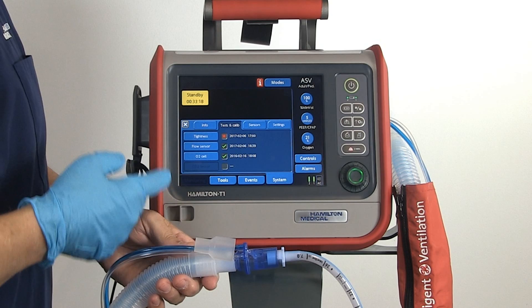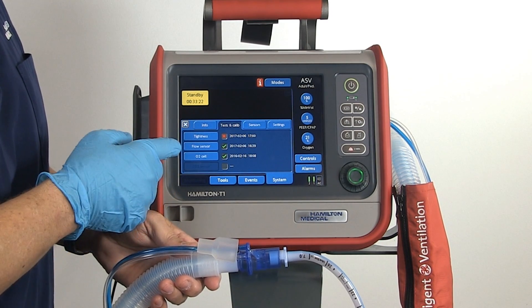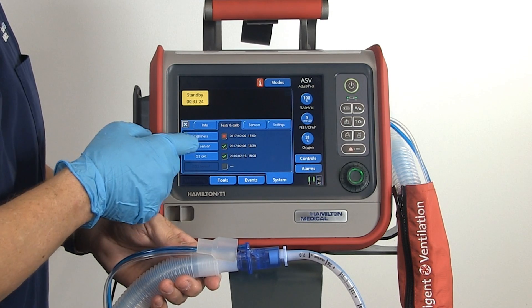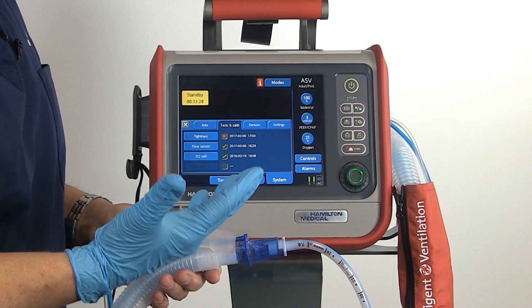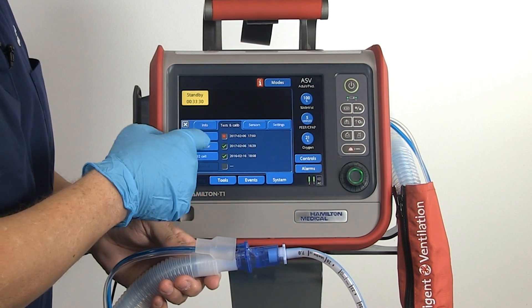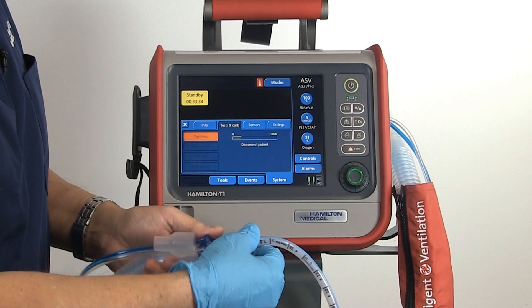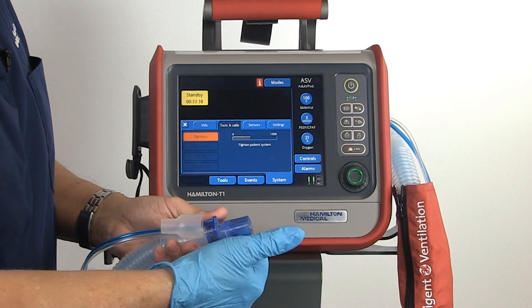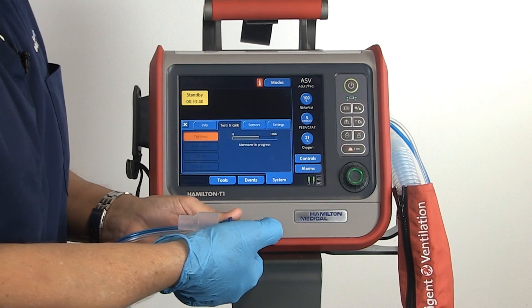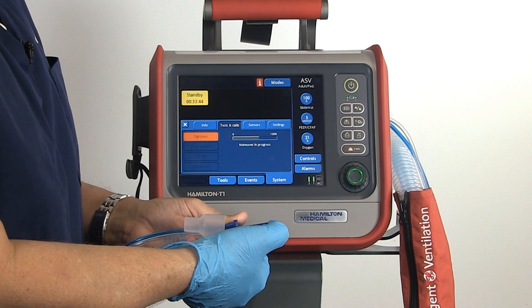The O2 cell is only performed as indicated by the ventilator. The first test we will run will be the tightness test. You always want to make sure, because you will be occluding the circuit, that you have a glove on your hand. Press tightness and follow the commands. When prompted to tighten the patient system, with your gloved hand, you tighten the system or occlude the circuit.